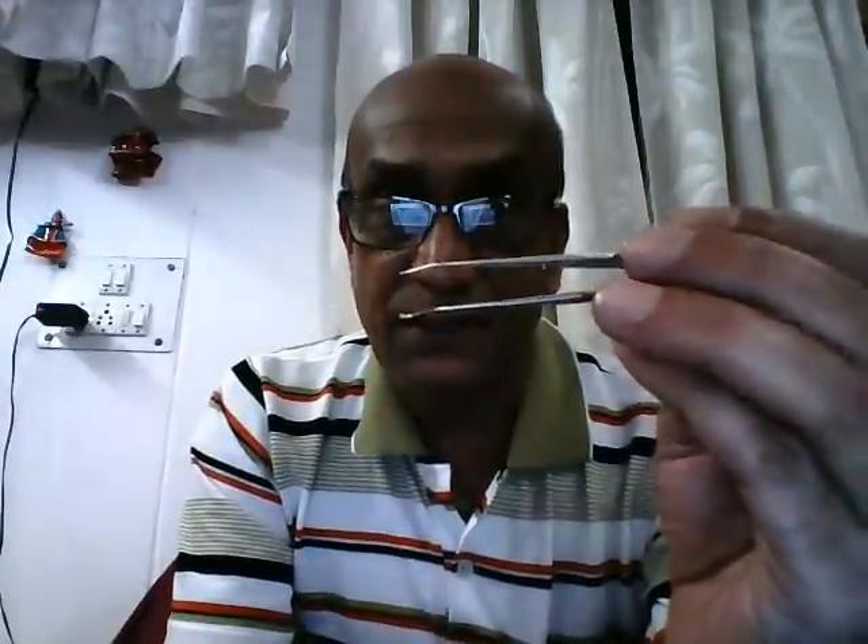The next instrument is the superior rectus holding forcep. It is made of special springy stainless steel. The gripping surface has corrugations and ridges to prevent slipping from the fingers. Looking between the two prongs, there is a small projection that governs the maximum pressure that can be applied between the prongs.